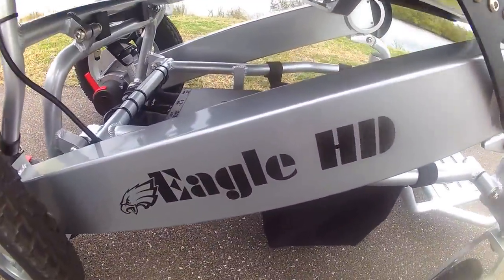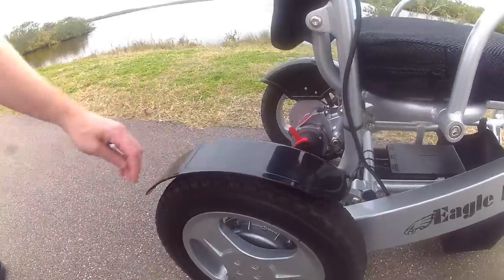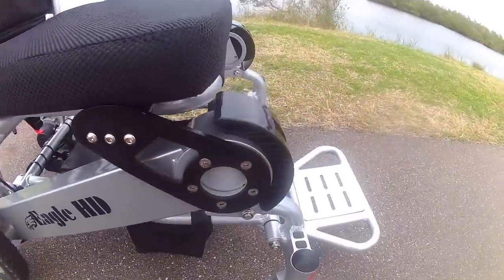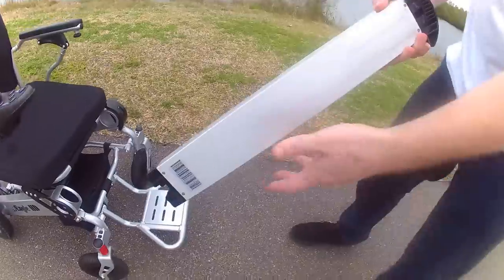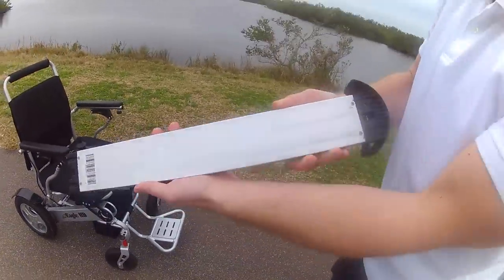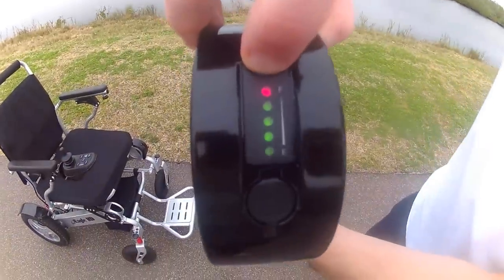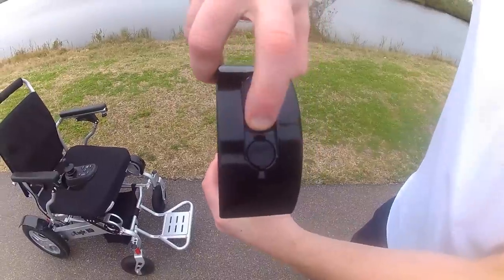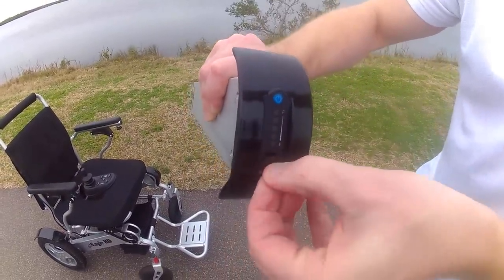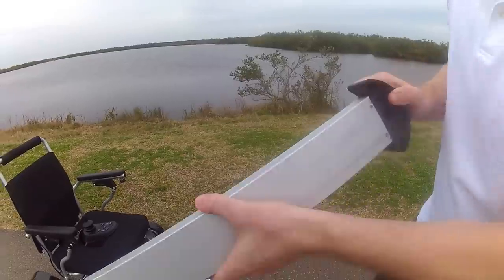You can see the Eagle HD — heavy-duty chair — and a feature we have over the wheels is a splash guard because, unlike chairs that have the battery underneath, the batteries here are in the side. I'll show you how easy it is to take a battery out. This battery is FAA travel approved, 6 amp-hours, and weighs just 4 pounds. I can press the button to see how much power is remaining — more green means fuller, red means empty. There is also a charging port on the outside of the battery, so a battery can be charged individually outside of the chair.